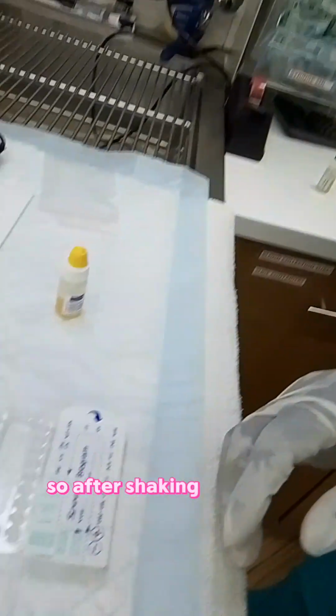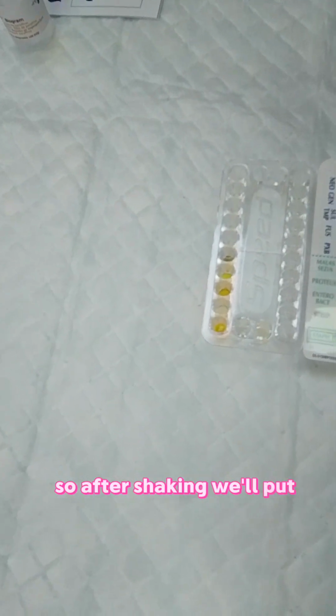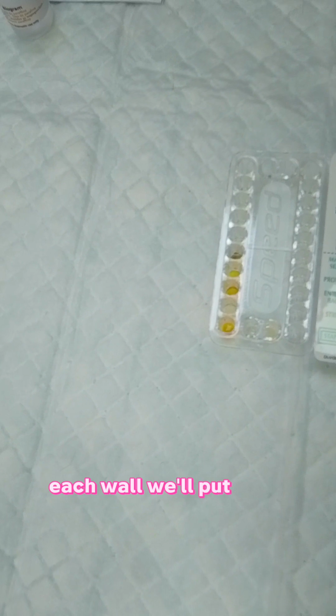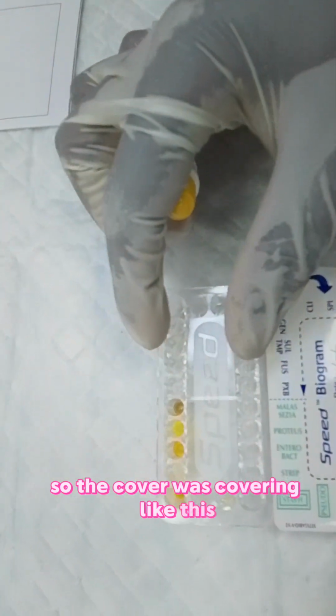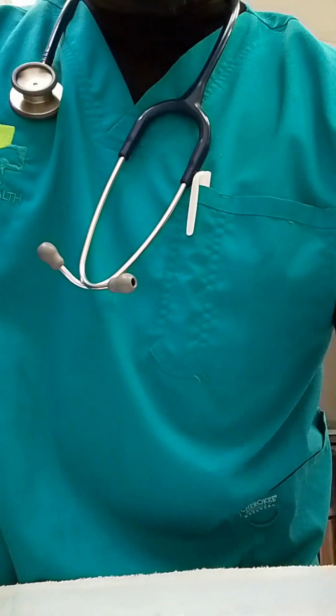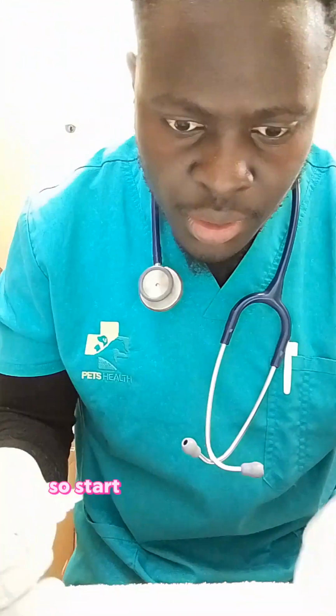After shaking, as you can see, this is our well. We will put 3 drops in each well. The cover was covering like this, so I removed it and then brought it back like this, so I don't get confused. So I'll start putting my 3 drops.